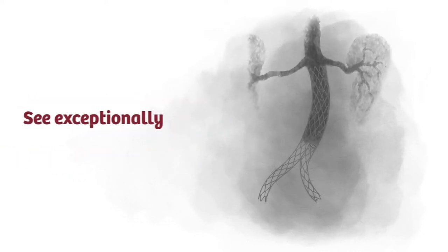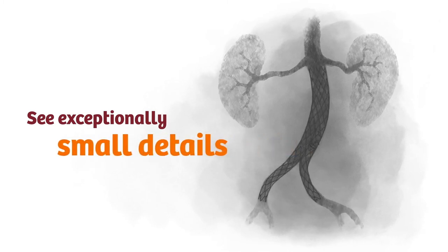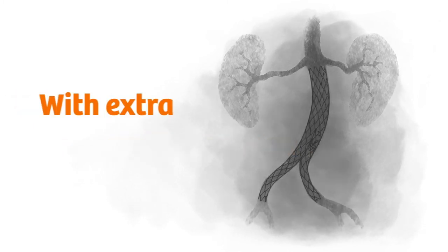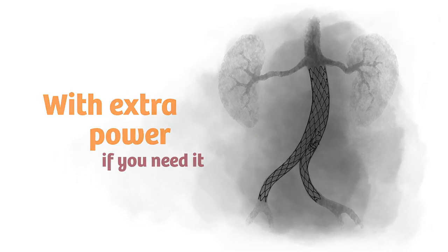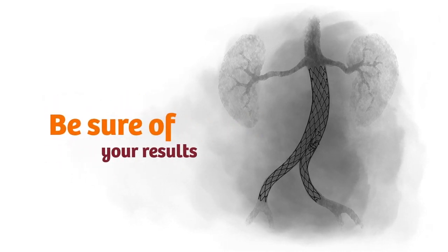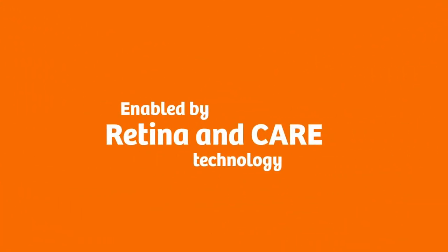See exceptionally small details with extra power if you need it. Be sure of your results. Enabled by Retina and Care Technology.